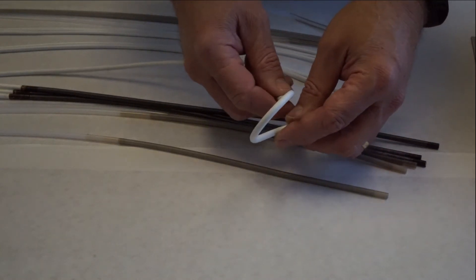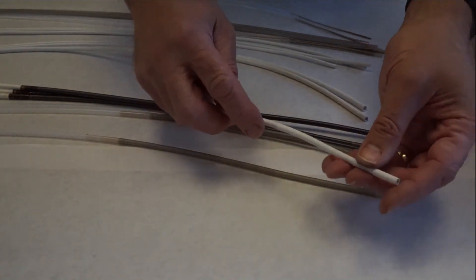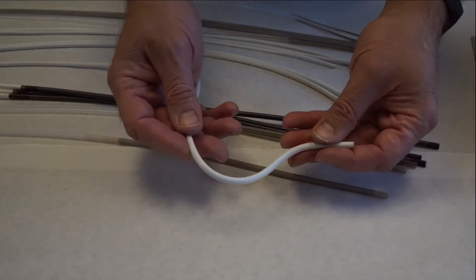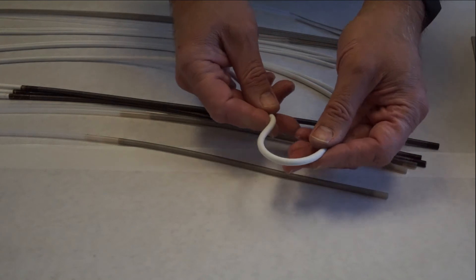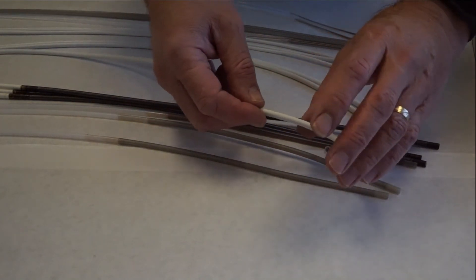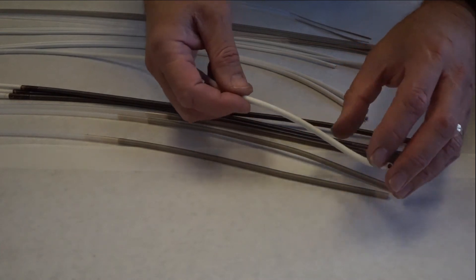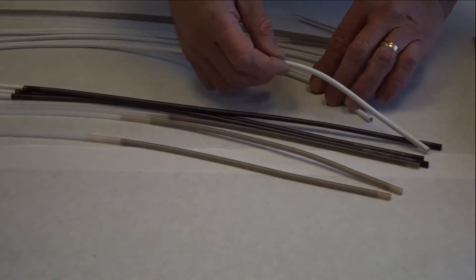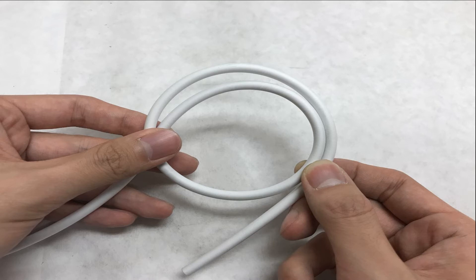The reason this channel is designed this way is that engineers wanted to create the most flexible channel available on the market. It requires approximately a quarter the amount of force to angulate it in the bending section than its OEM counterpart and it is still highly recommended by repair facilities all over the world for its ease of use and high level of flexibility.